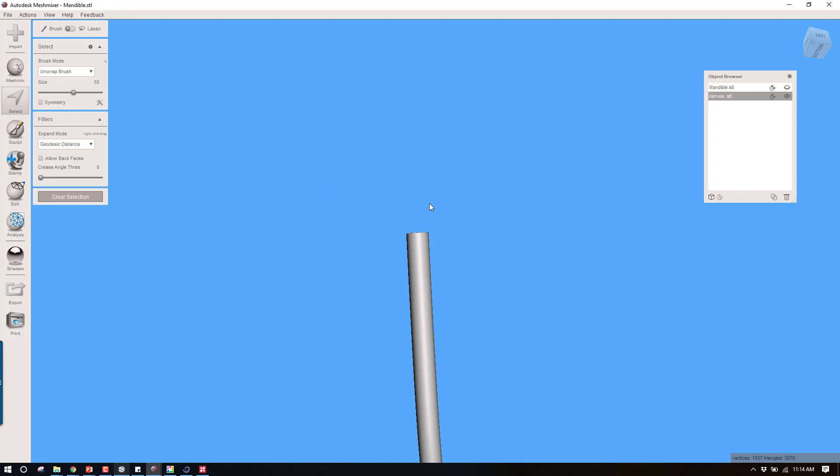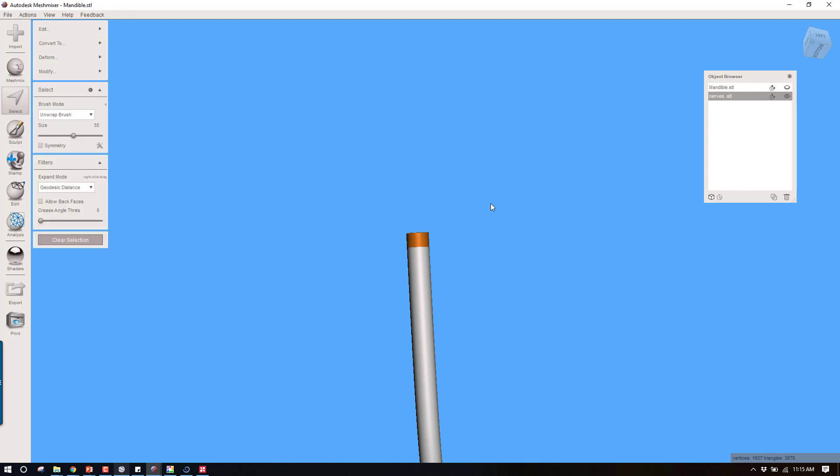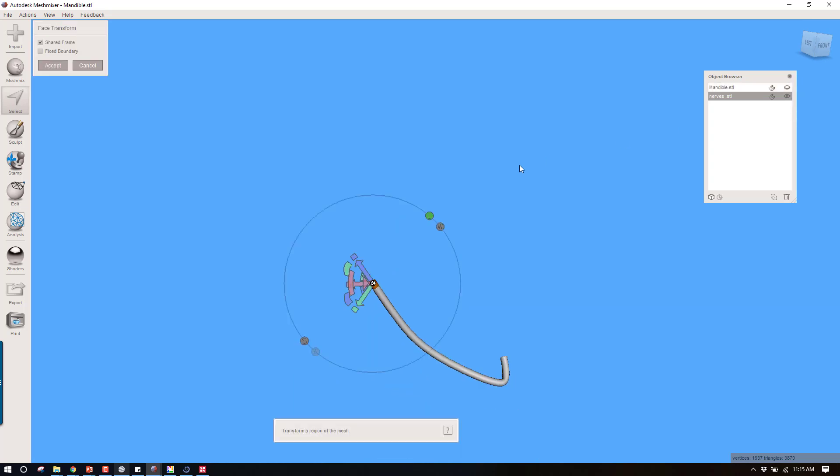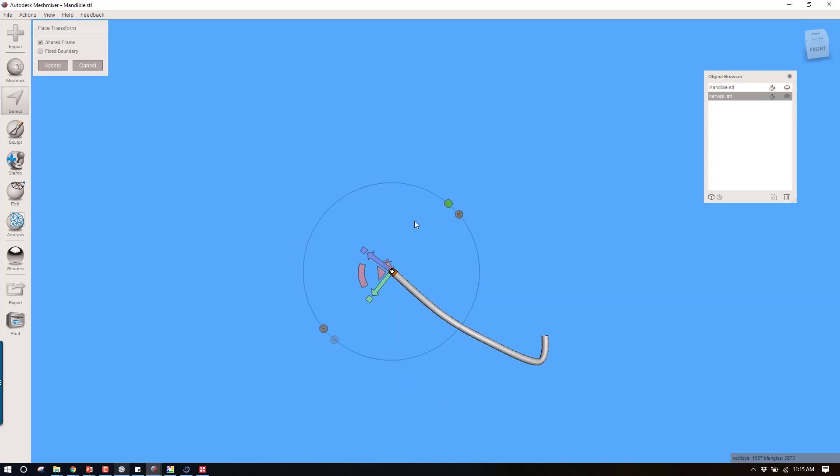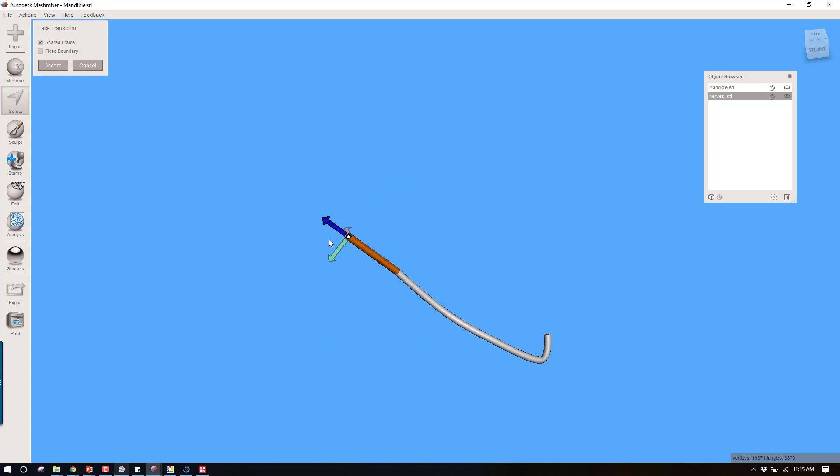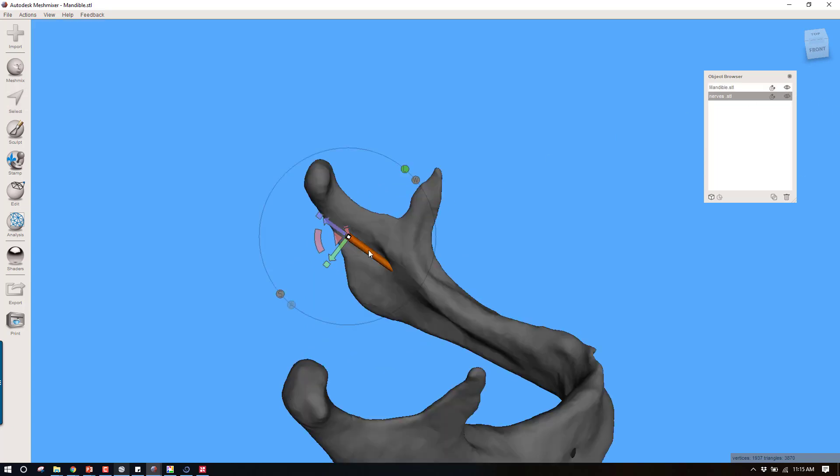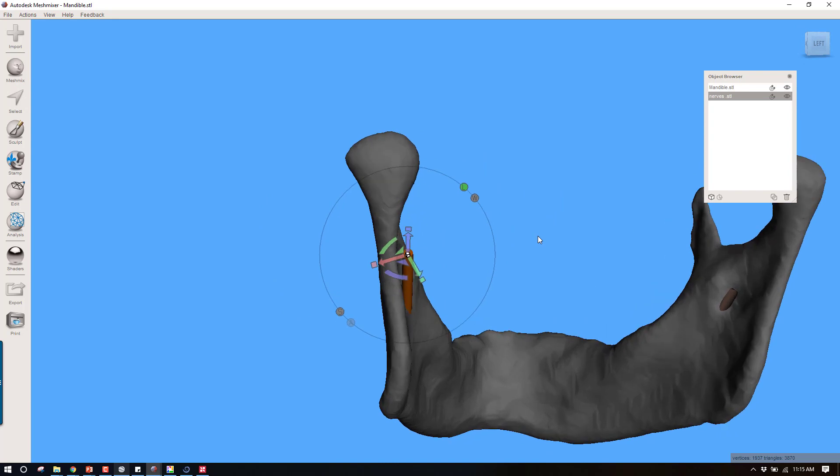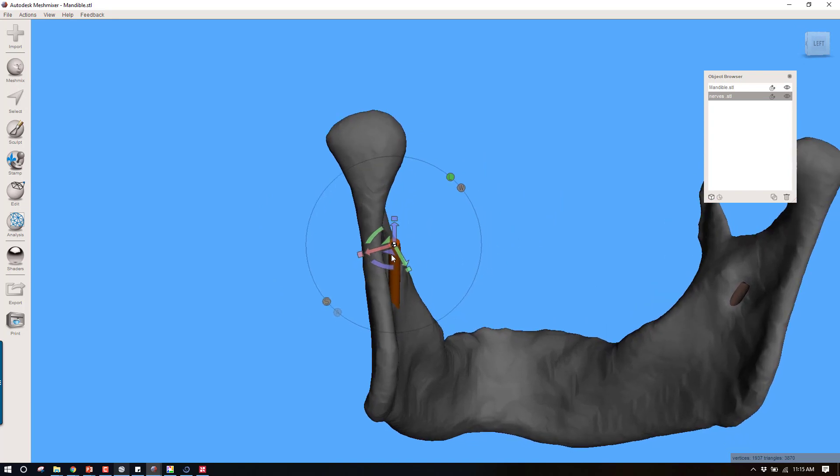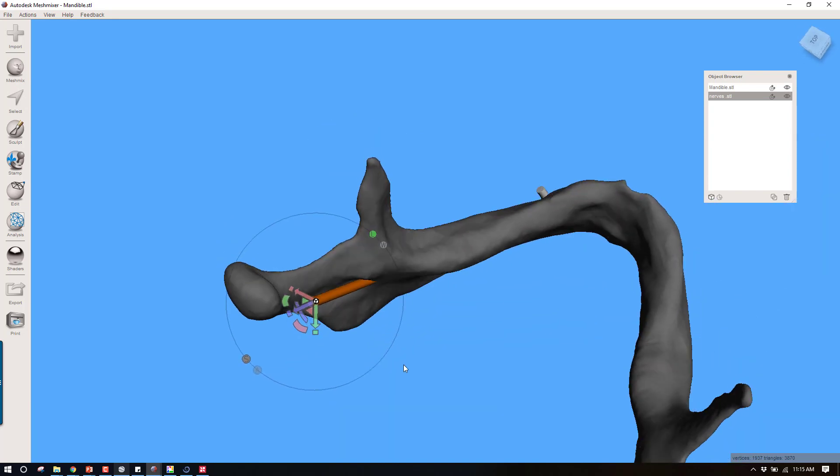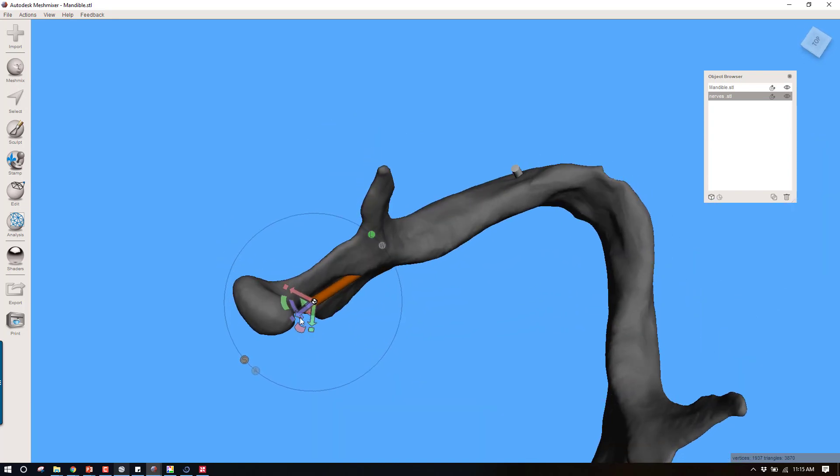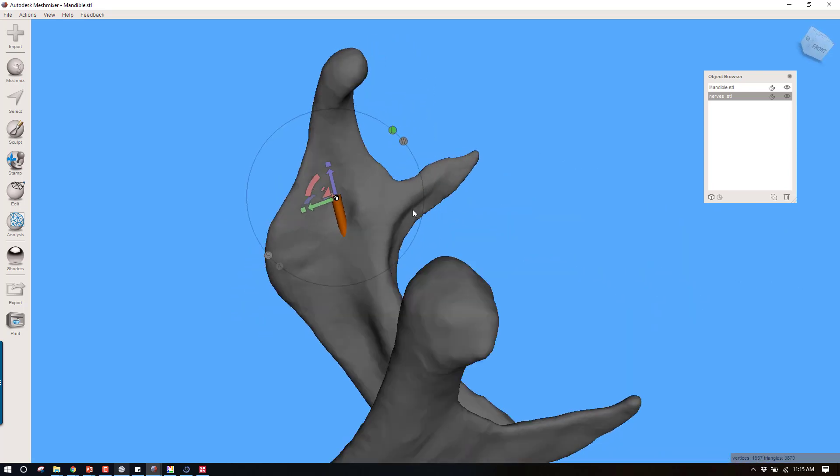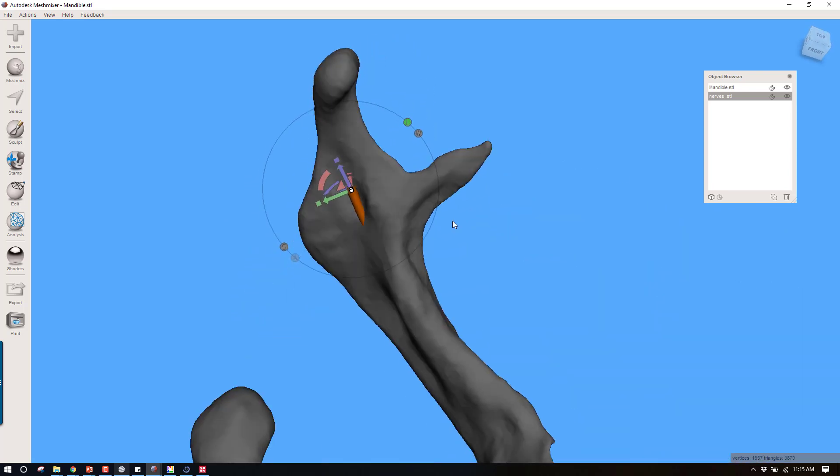I'm going to select just the tip of this nerve. Then push T for transform. This will allow you now to extend this on back. The purpose of this again is just to allow us to extend this nerve so that there is a through and through hole and so that we get a complete subtraction. Now that that's done, I can click out of that.